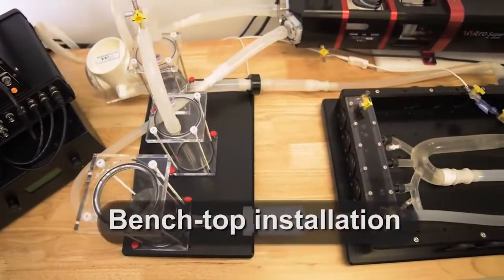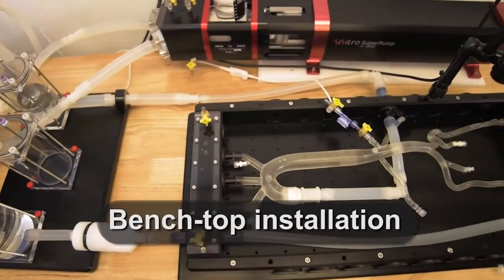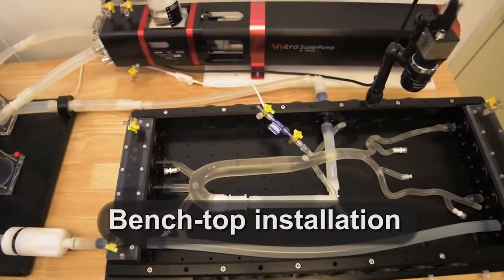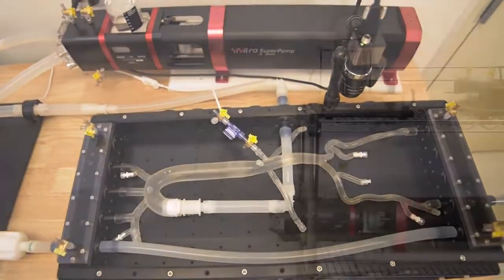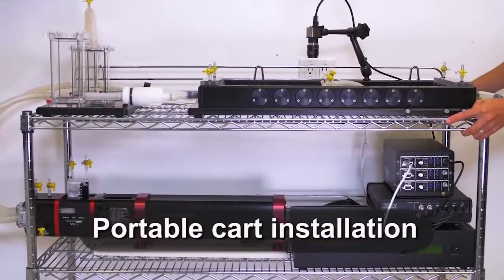The Vivitro Endovascular Simulator can easily be reconfigured for benchtop, cath lab, or portable cart installation.